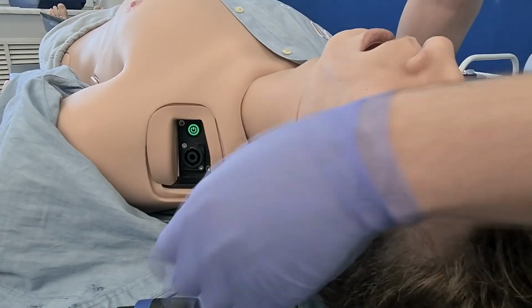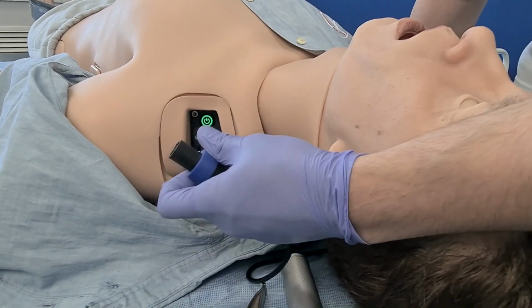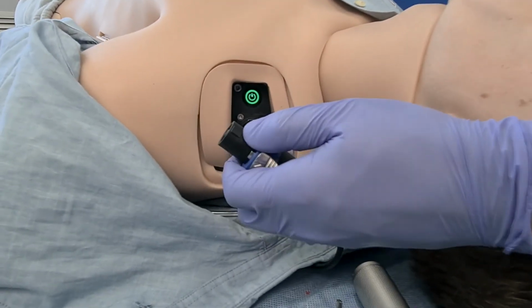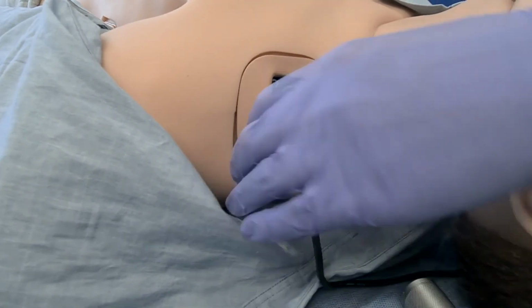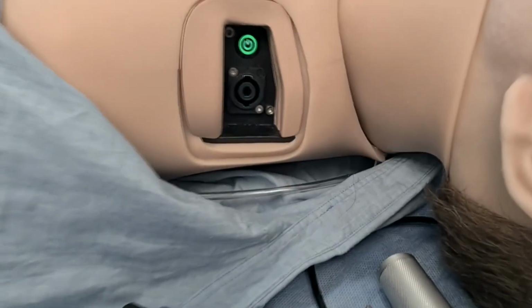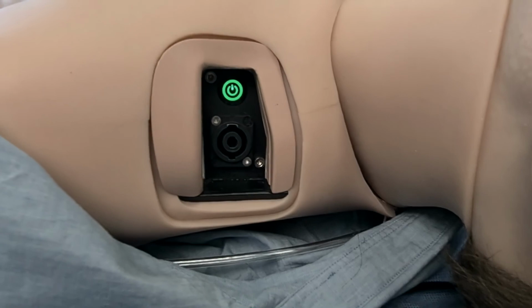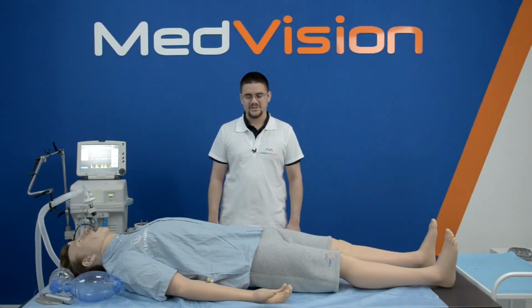To charge your Leonardo, grab the connector, and it has two parts that are different sizes, and you have to align them with the receiving end. Twist it until it locks, pull the lever, remove it, and of course the green LED signifies that Leonardo is on and operational. While Leonardo High Fidelity is a patient simulator that can do it all, Leonardo Essential is oriented more towards EMS trainings.